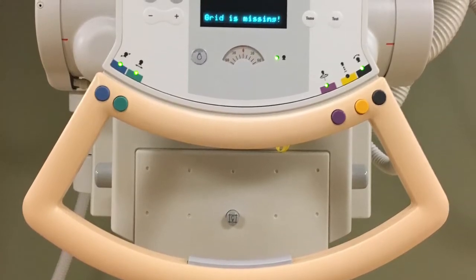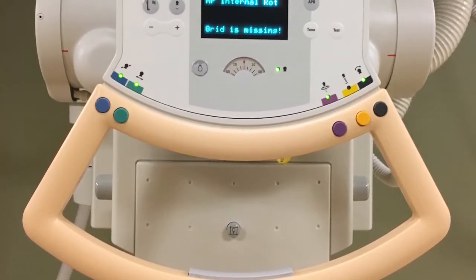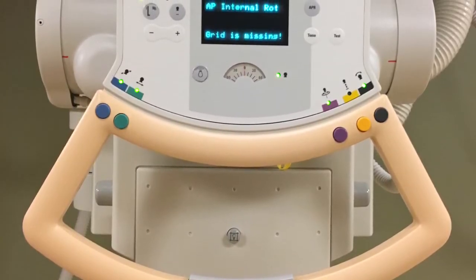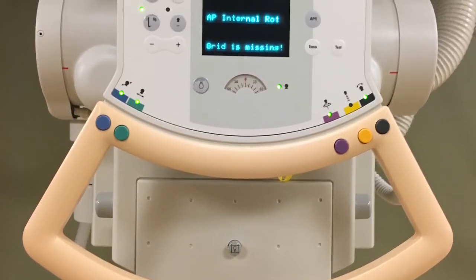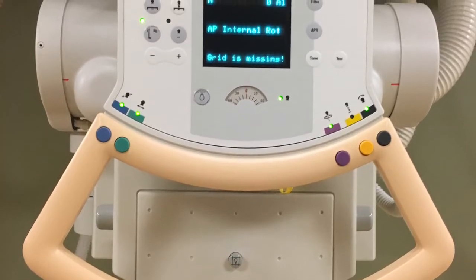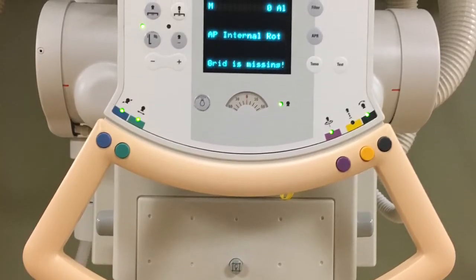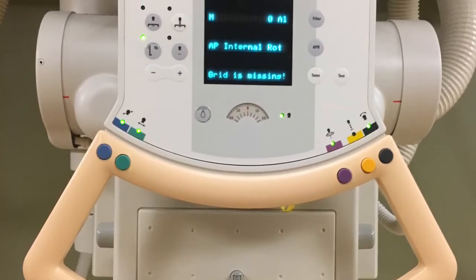Stitching is frequently used in digital radiography exams where the anatomy won't fit within the 17 by 17 detector. Some exams where you may see the stitching function used are the femur, tib-fib, scoliosis series, and leg lengths. The Philips DR equipment that we're going to use can perform stitching when you're doing an exam on the table or using the upright bucky.